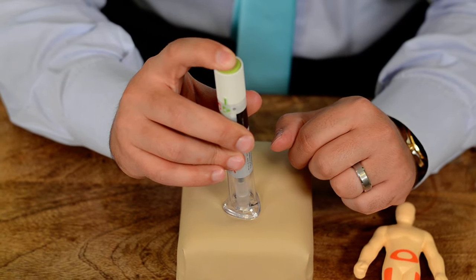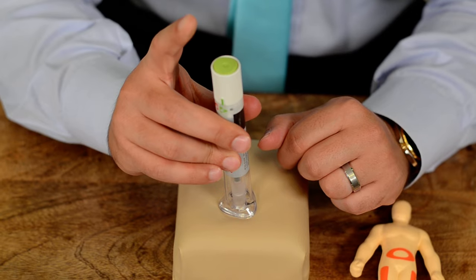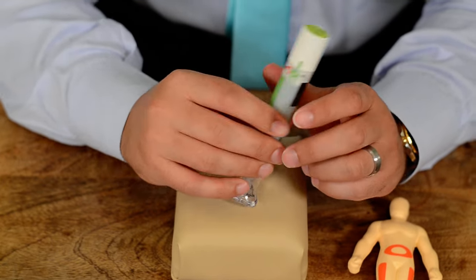You will hear a click, that means it's done. That's once a week, and pushing a button, as easy as that.